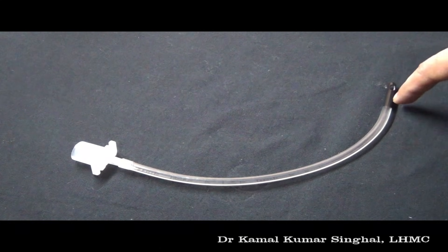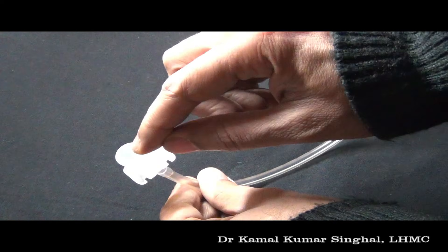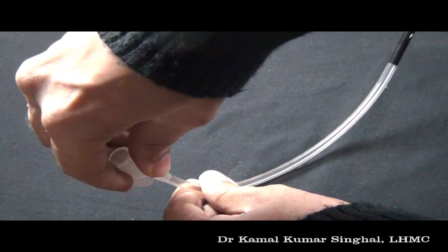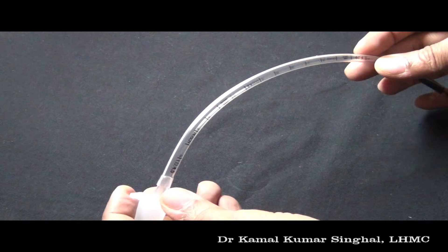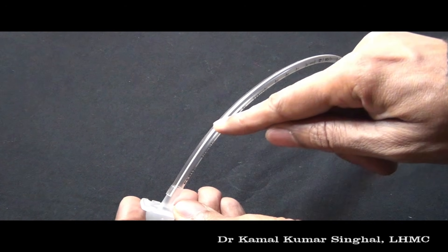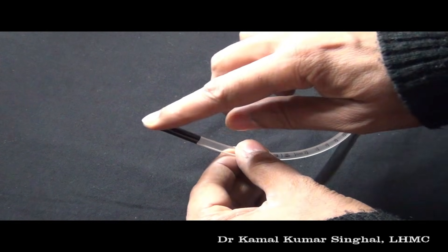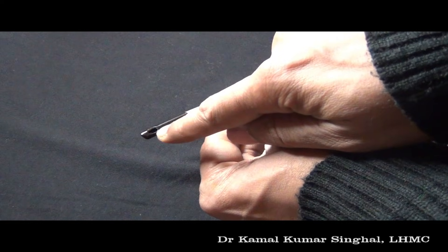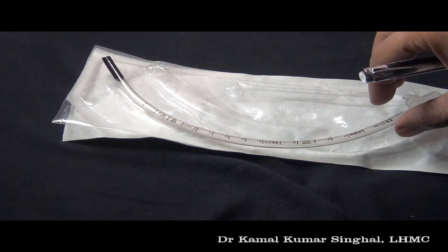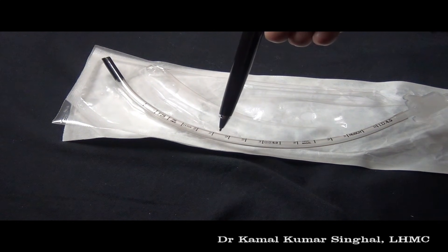This is an uncuffed endotracheal tube, because there is no cuff at the tube end. This is the connector of the endotracheal tube, which connects to the tube. The line that you see here is a radio-opaque line, which helps us see the position of the tube on an X-ray. This is the angled tip of the endotracheal tube, and this side hole is known as Murphy's eye. You can also see depth markings, which indicate the length of the endotracheal tube that has been inserted.